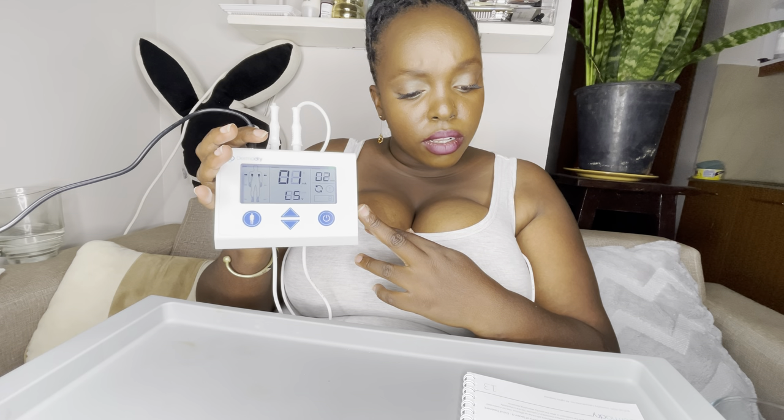Press the activation button for three seconds — the green LED will begin to flash. I'm two minutes in. When treatment begins, the green LED will turn on, the current will begin to rise slowly towards the set point value, the treatment timer will decrease, and when less than a minute is left the display will switch to seconds. The real-time tension in volts will also be displayed.